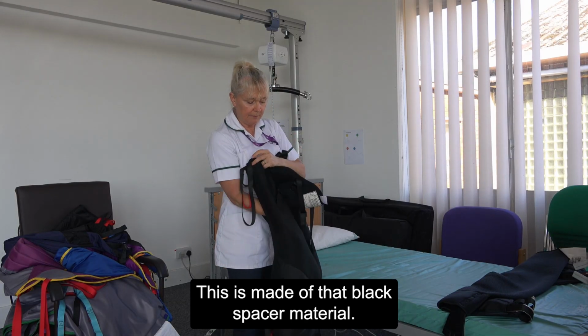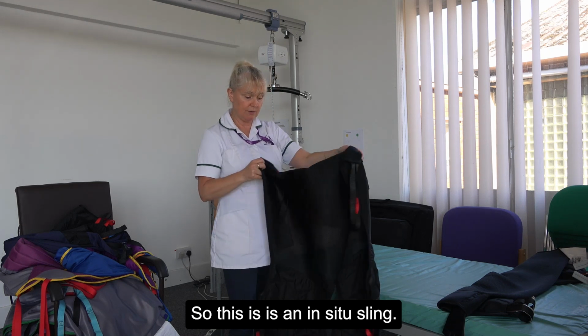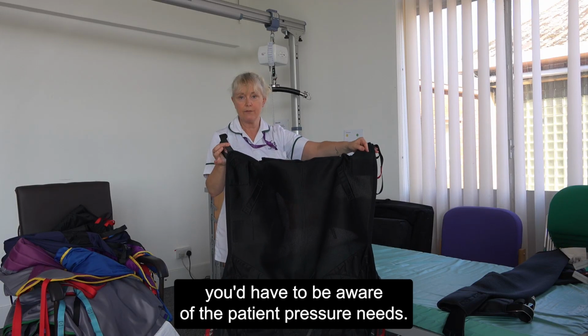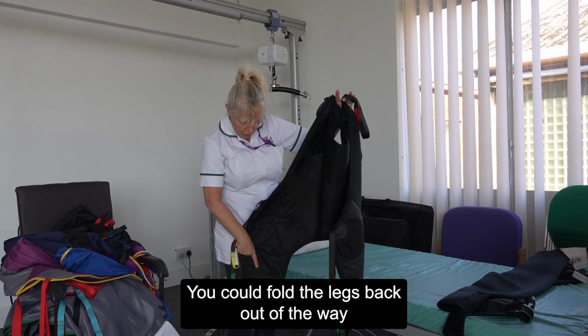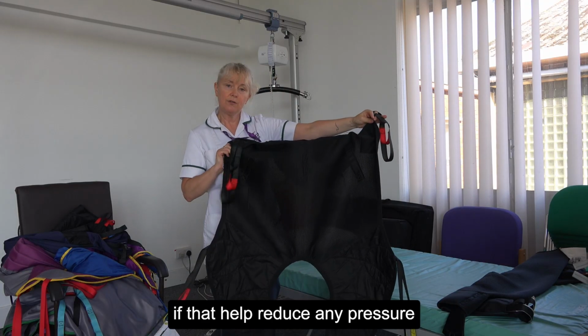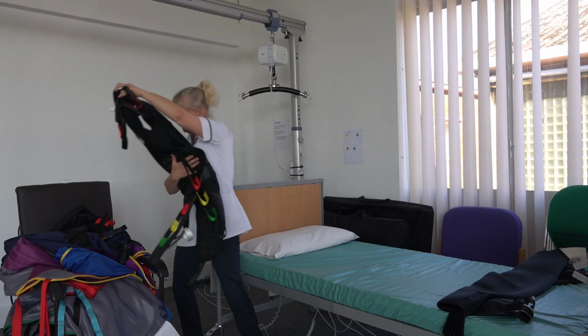This is made of that black spacer material, so this is an in situ sling. But when assessing for an in situ sling, you'd have to be aware of the patient's pressure needs. When you've got this on a patient, when they're sitting in a chair, you could fold the legs back out of the way if that helped reduce any pressure injuries to the legs.